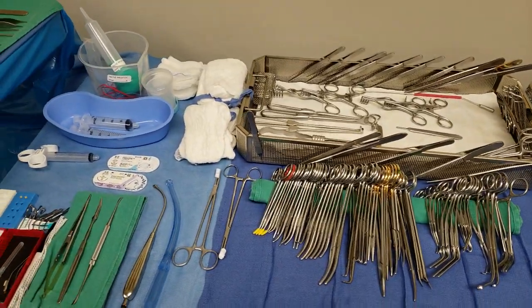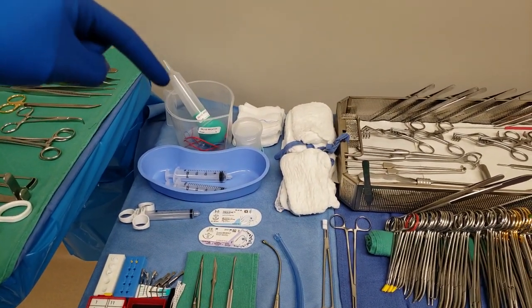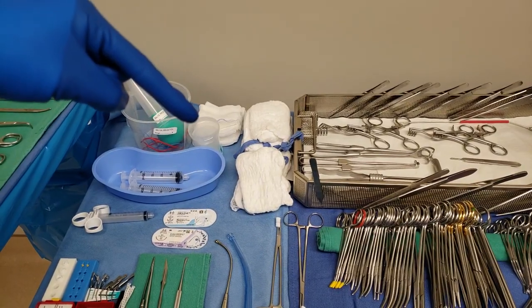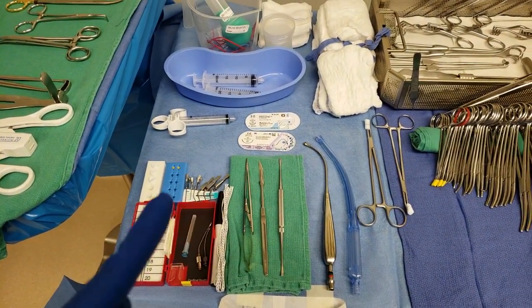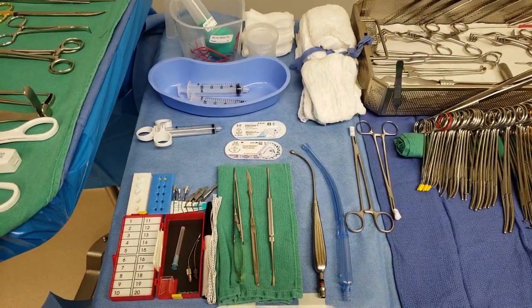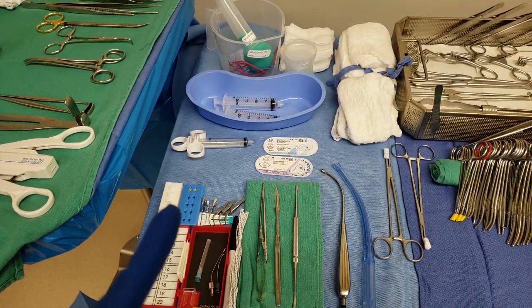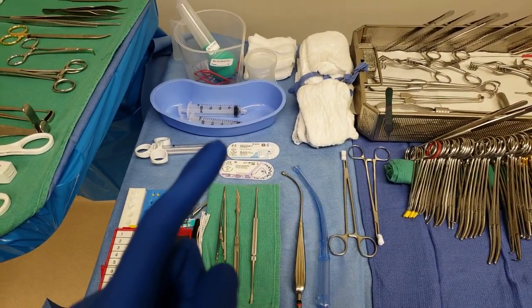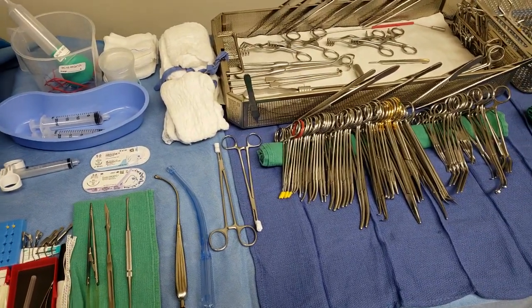As usual, you've got to label all your stuff. I haven't gotten any saline yet, and hep saline over here — everything has to be labeled. Raytex laps, I'm probably gonna get some thrombin here but I haven't labeled it yet because I'm not gonna open it. These are the bulldogs, and I put them in this little indicator to organize them so they're easier to grab since they're very tiny. These are the suture boots — they're meant to hold sutures, especially for prolene, because if you don't use the boots it's gonna ruin the thread and it'll snap easily.